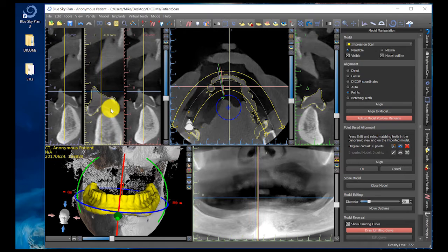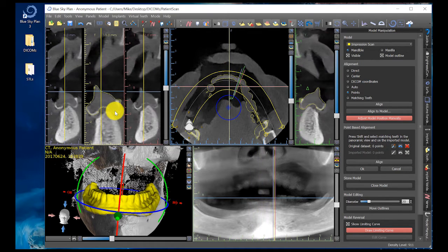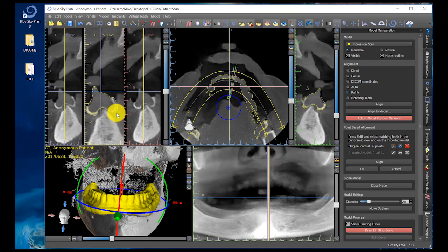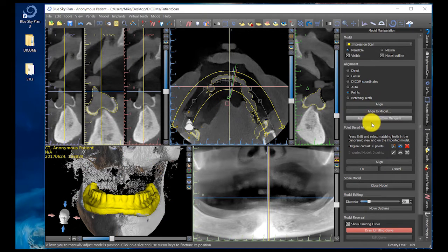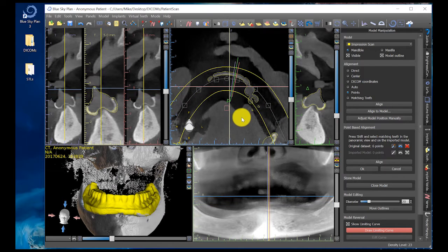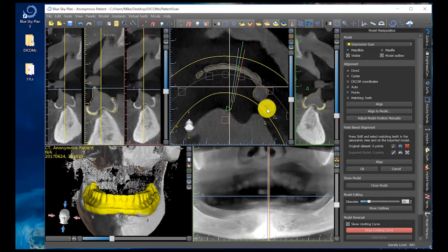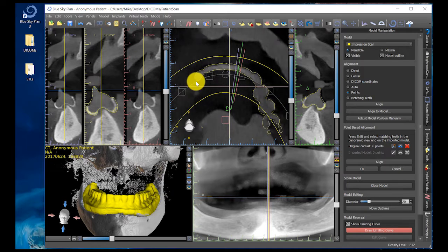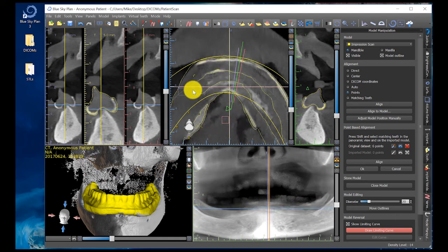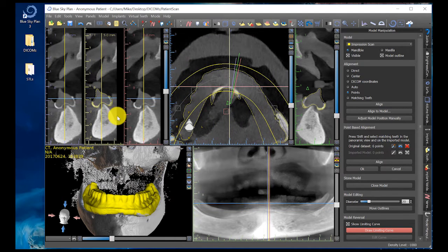This is how we join multiple scans together to create a surgical guide. I uncheck the 'adjust model position manually' button and verify that the cusp tips are all aligned properly. You can see this yellow outline corresponding correctly — this is a really nice merge of this data.